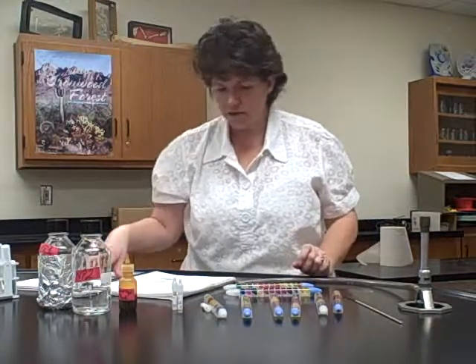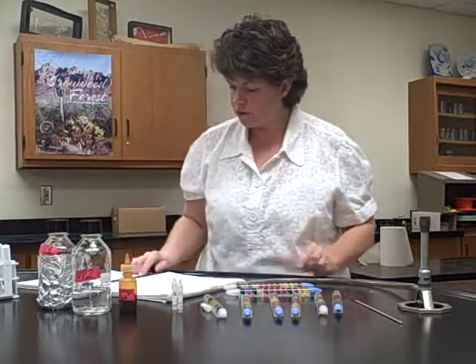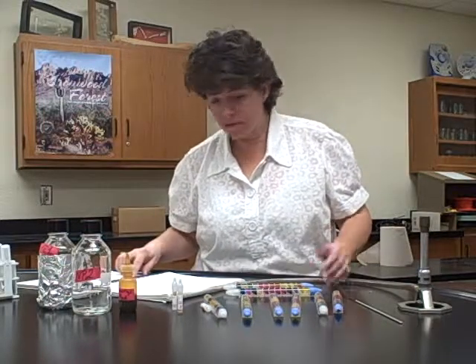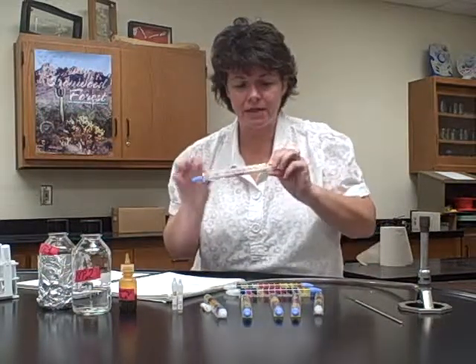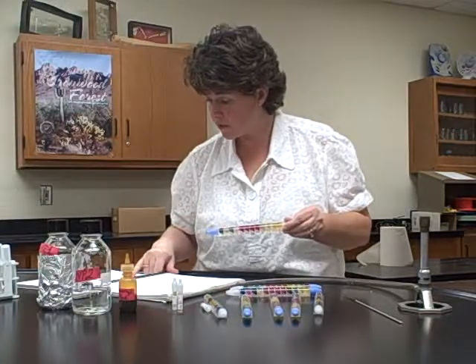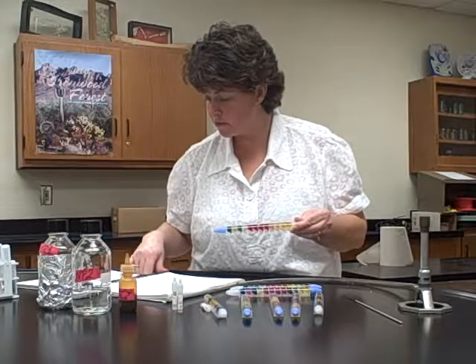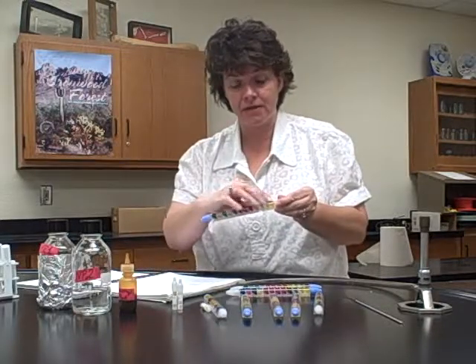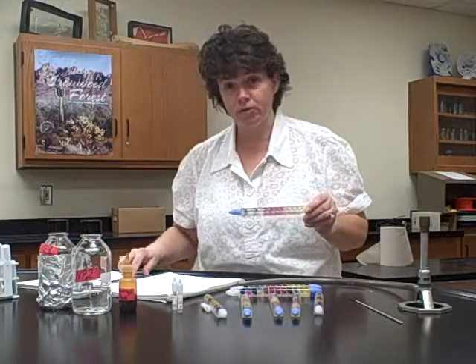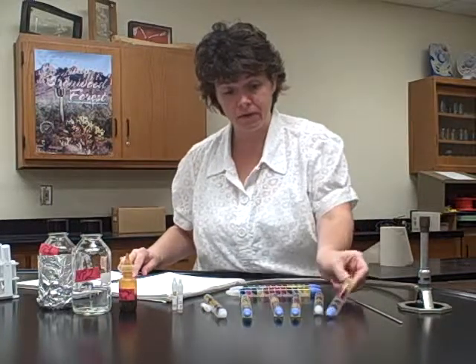After you compare your results, on page 113 at the bottom, they have a picture of an entero tube. Let's say for this one here, I see that it's turned yellow from red, so that's acid. You see the numbers, it says 4 + 2 + 1. So I have acid. I also have gas because it's separated. So I circle both 2 and 1, and 2 + 1 is 3. So your first number is a 3.